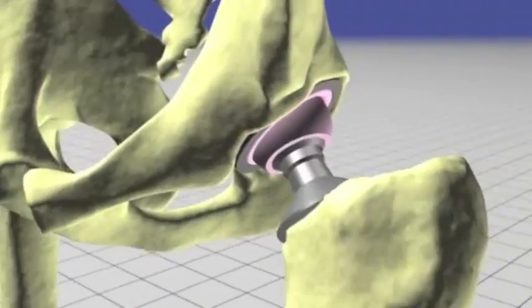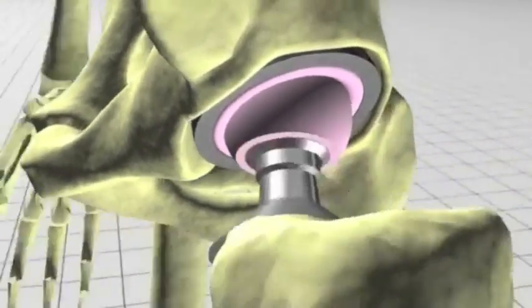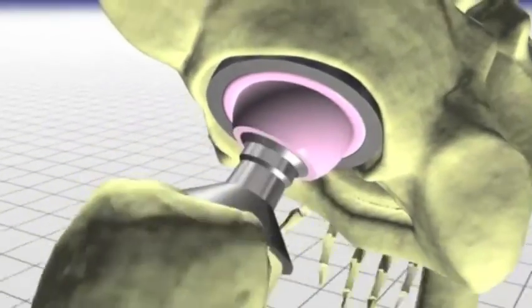The ceramics provide a very low friction, very safe, very durable bearing surface. I hope you enjoyed these series of clips from Ceramtech.